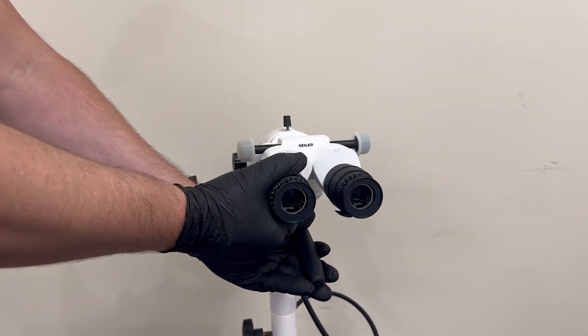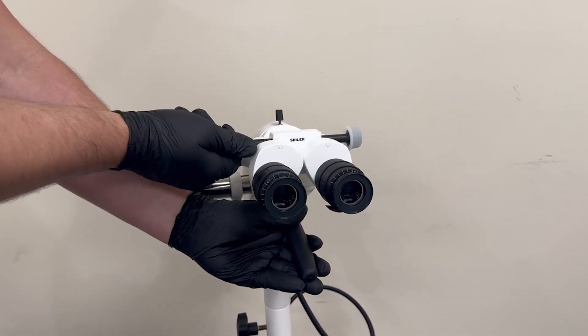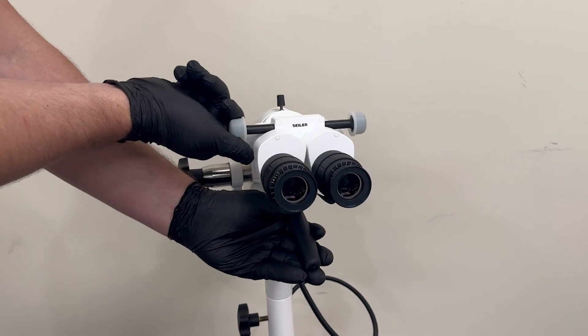Each head has an incredibly smooth interpupillary distance, which covers a range of 48 mm to 78 mm.